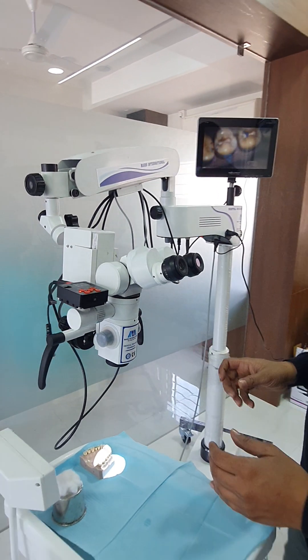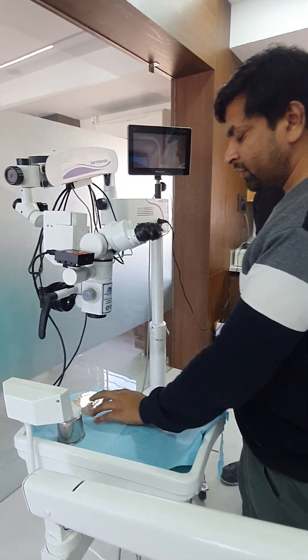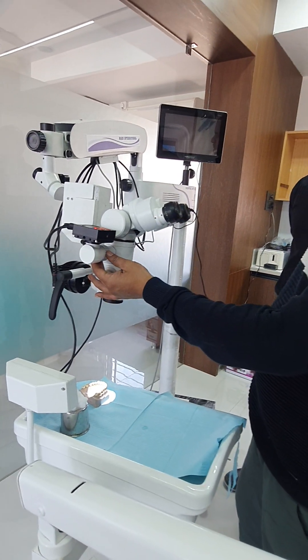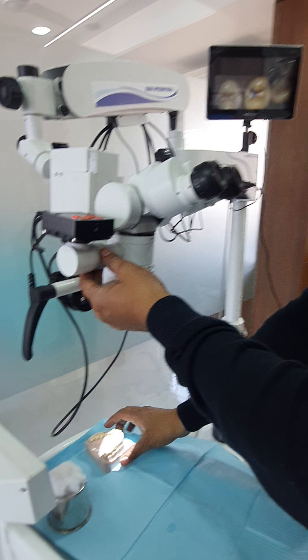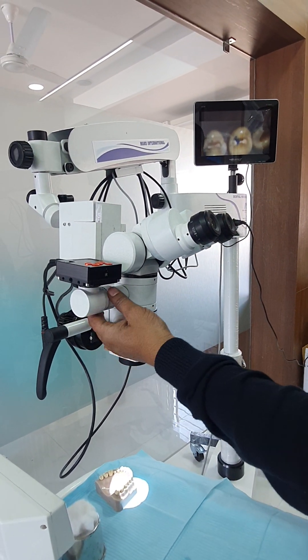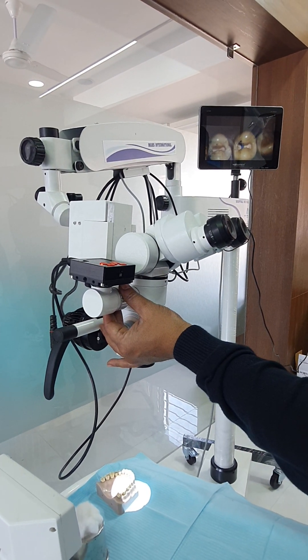First, you adjust the IPD and focus on the point. Once the image is clear through the eyepieces, this is the C-mount to clear the camera. If the object is clear from the eyepieces but not on the screen, you can focus the camera using this C-mount.